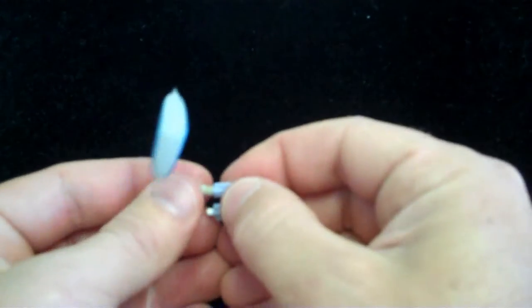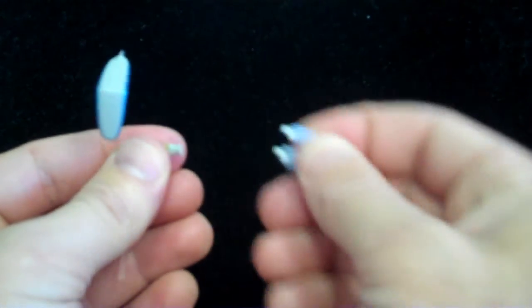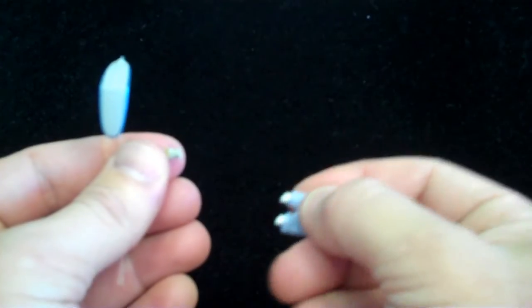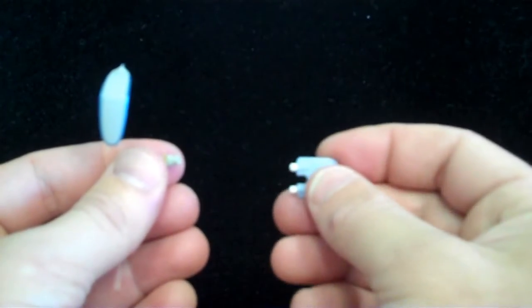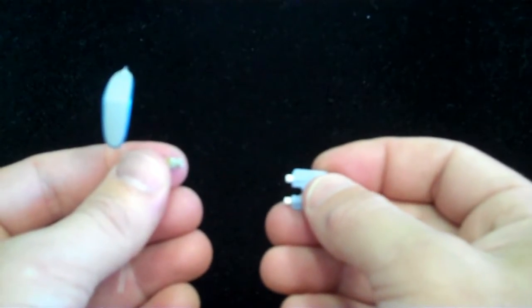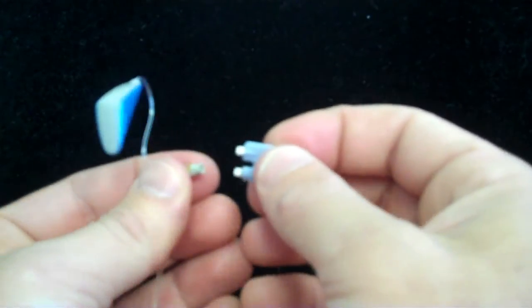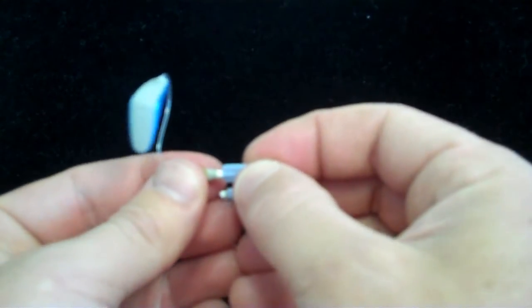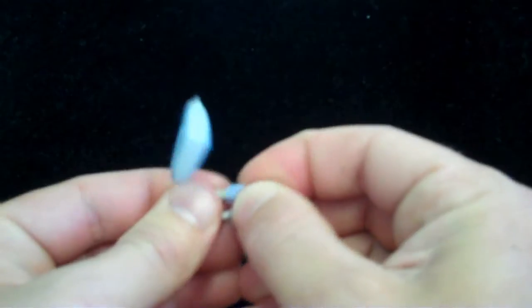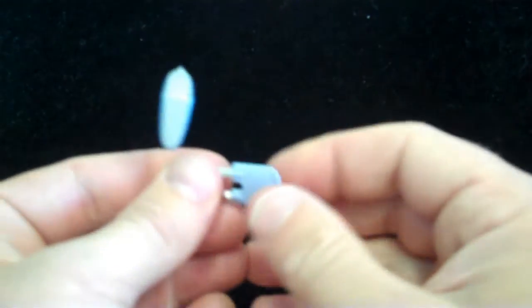We pull, removing the old filter. We turn the tool around, push the new filter down into the hole, and remove. And we've just changed the filter, the wax basket, on this Oticon product.